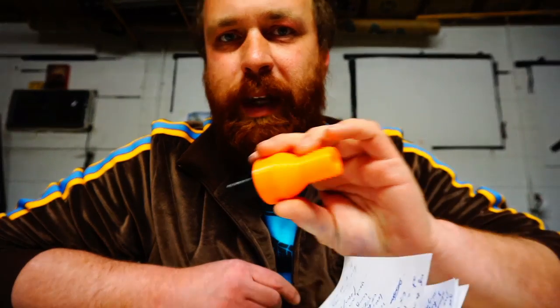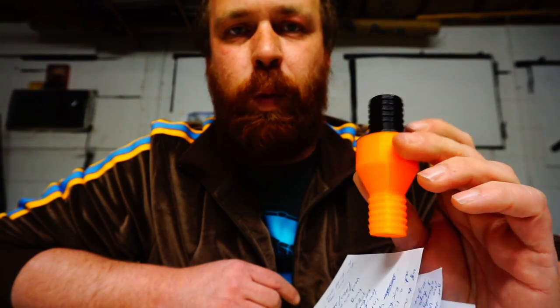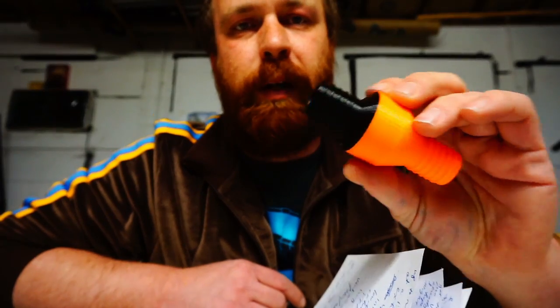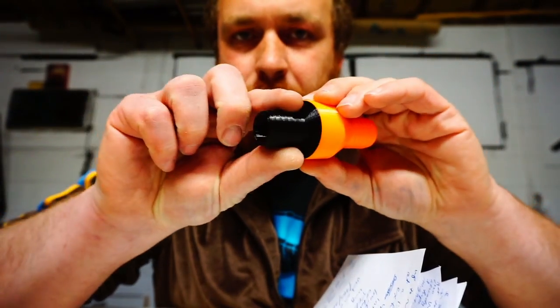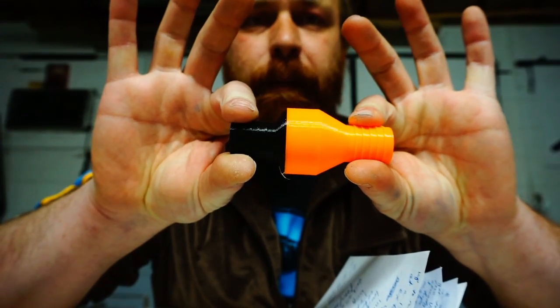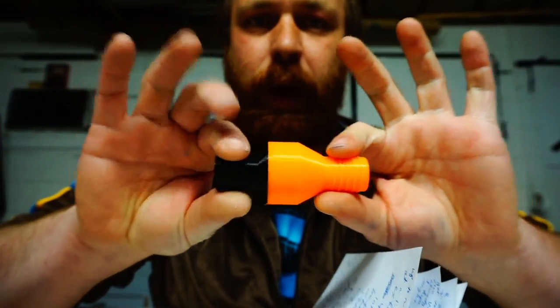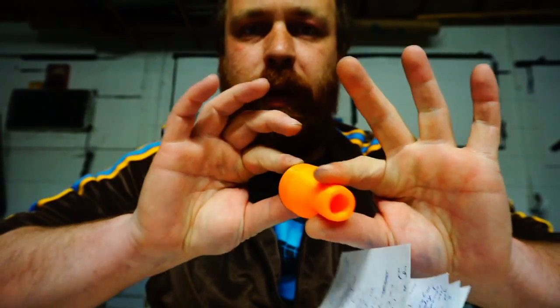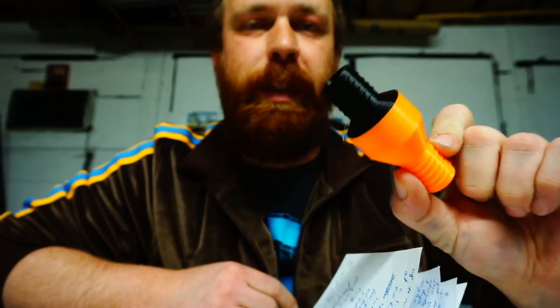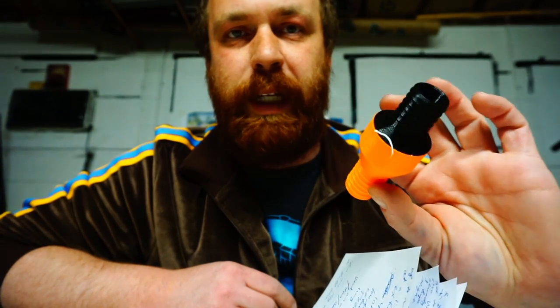I made it as a parametric design with a bunch of parameters as variables at the top, so you should be able to change one variable — like the diameter of the hose barb — and it propagates through the whole model. I made these for 22mm ID ventilation tubing, but you could scale it down or up depending on what other tubing you're using. Hopefully this will be a useful building block to get people started building pumps, air mixing devices, or bubbling humidifiers.